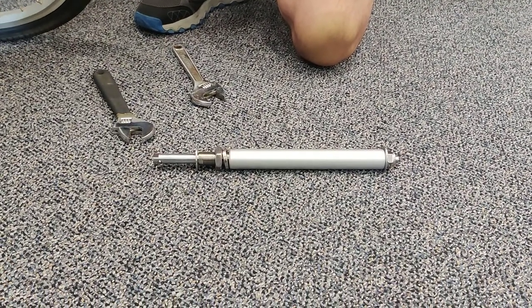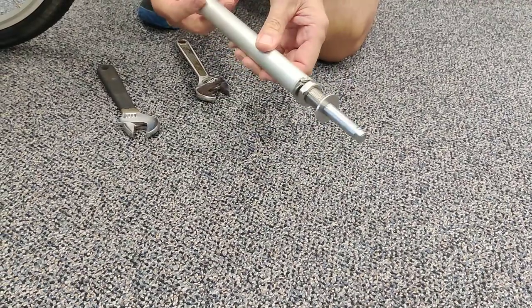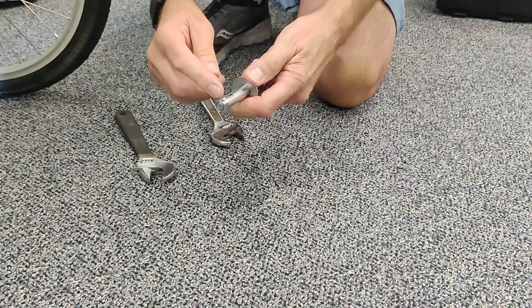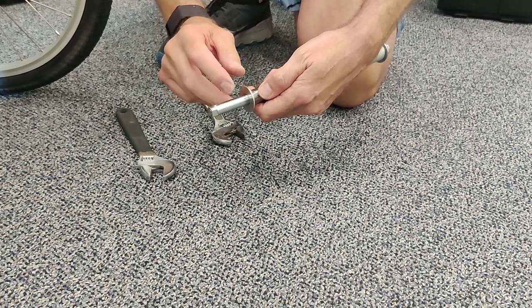What we've developed is a system utilizing the same type of quick release ball lock pin that has an adjustable length to it, because there are different pin lengths with different applications.